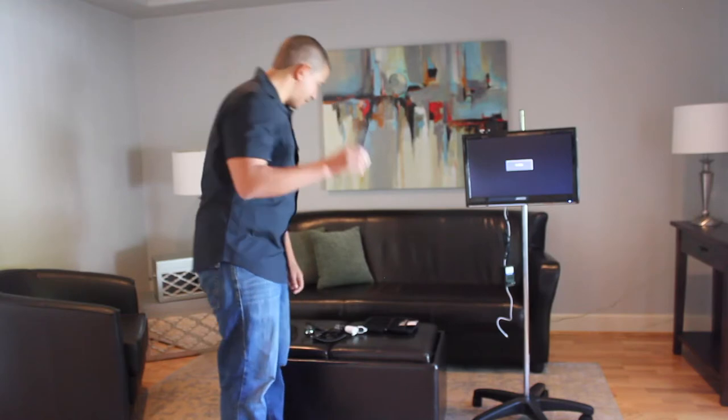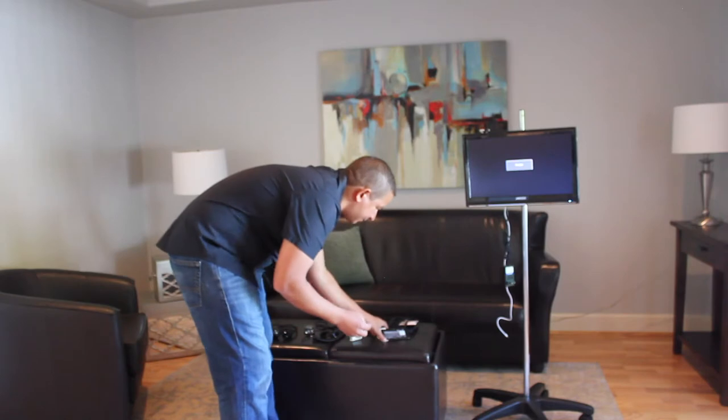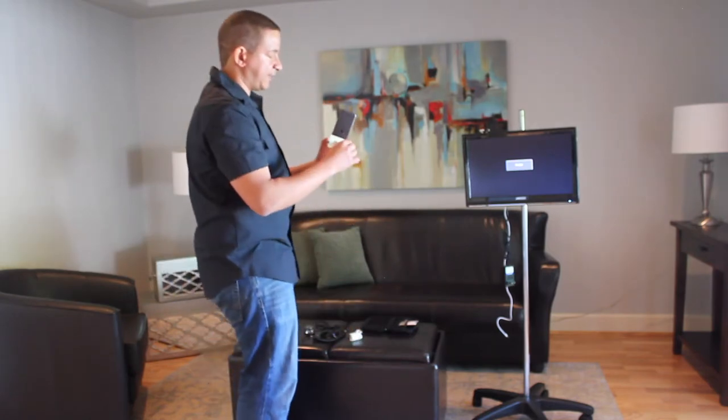I would recommend, actually, before you do that, you probably want to put a speculum on. You can grab any speculum in your hospital — it takes a standard speculum, which goes clockwise.